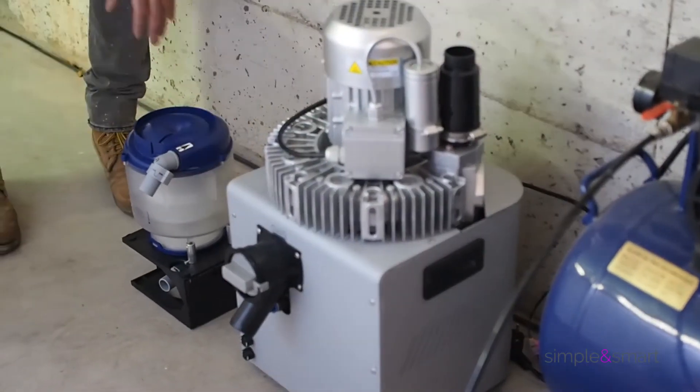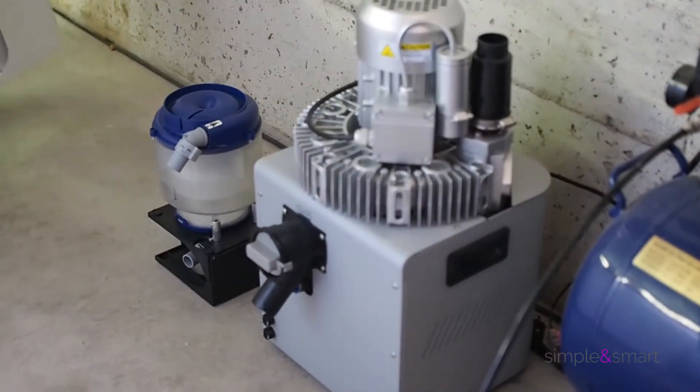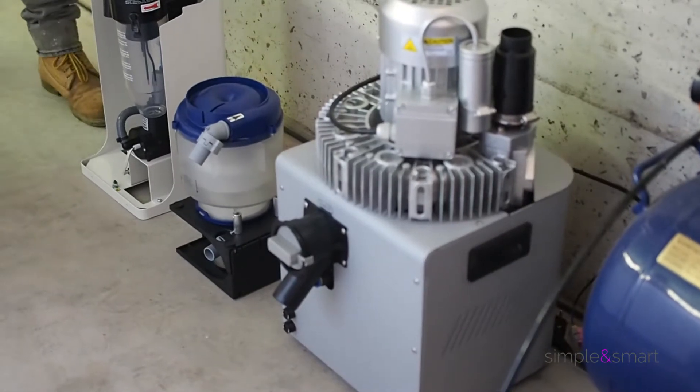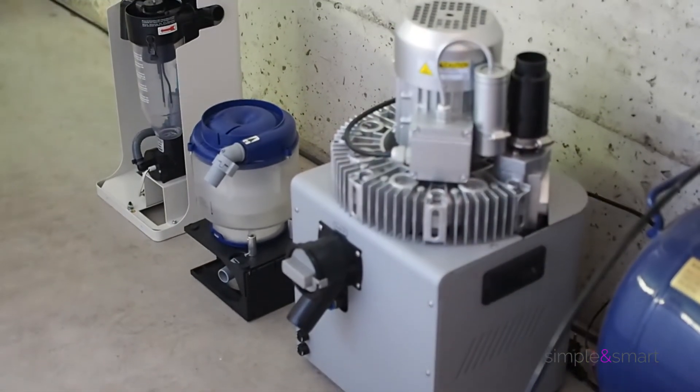You will be able to connect more than one dental unit to the same system. The result is less cost and more comfort for you.